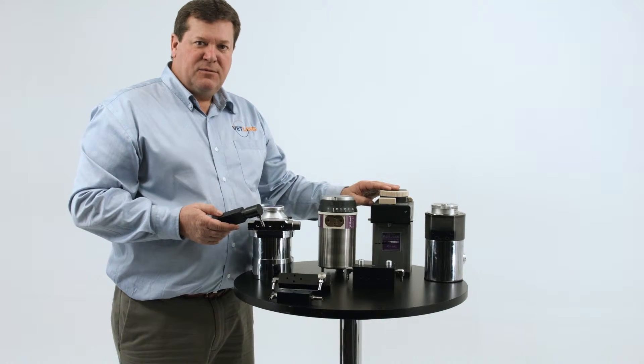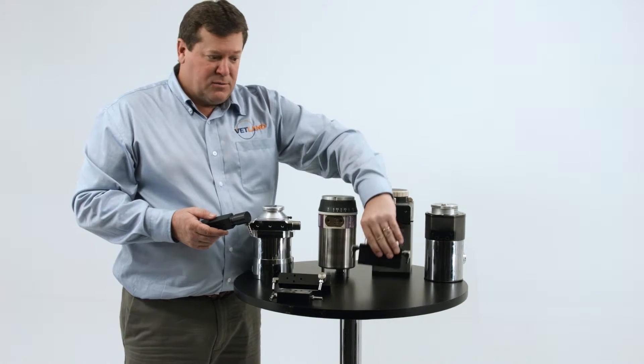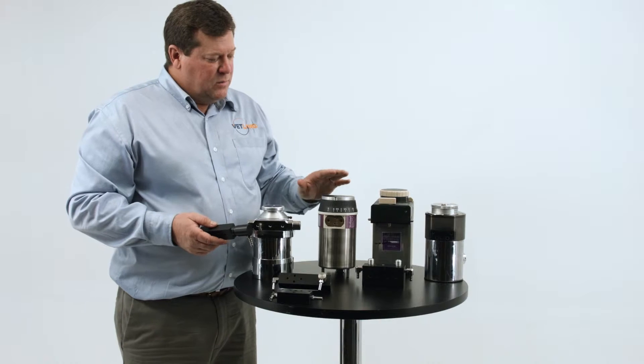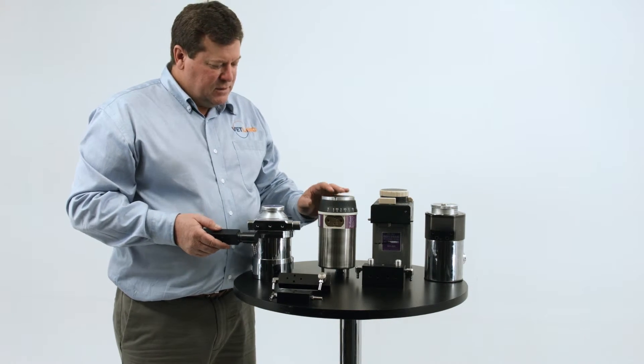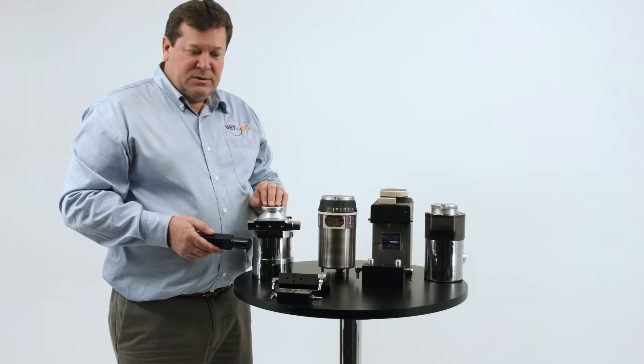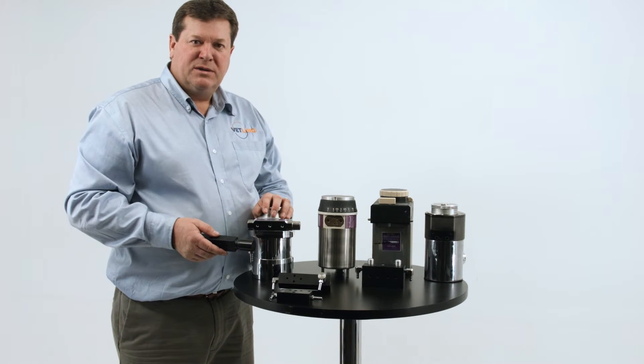If you purchase a TEC-4 vaporizer, you'll need the TEC-4 manifold. And on the Draeger vaporizer, you have three options based on what applications you're trying to solve. And on the TEC-3 vaporizer, it already has the manifold built in.